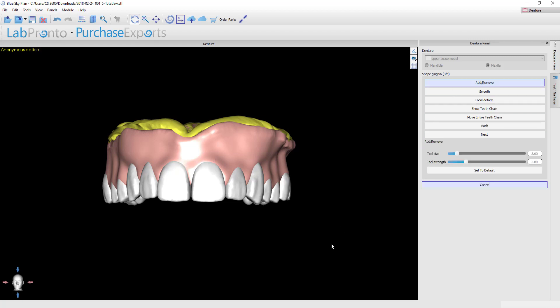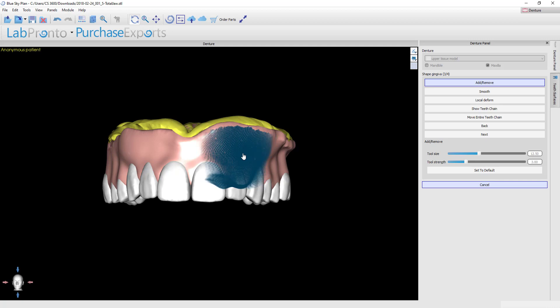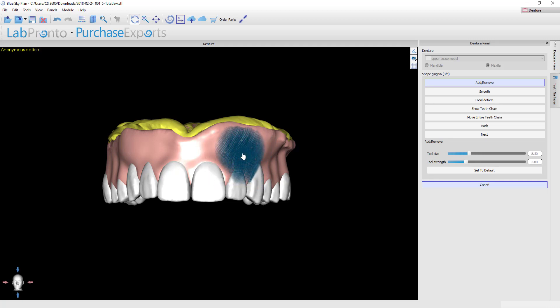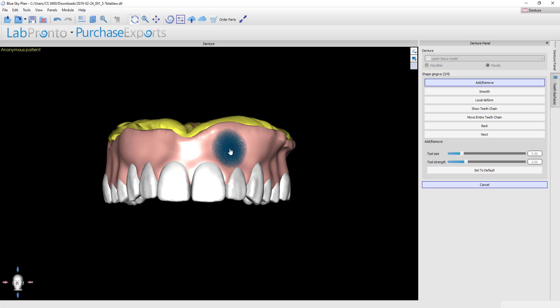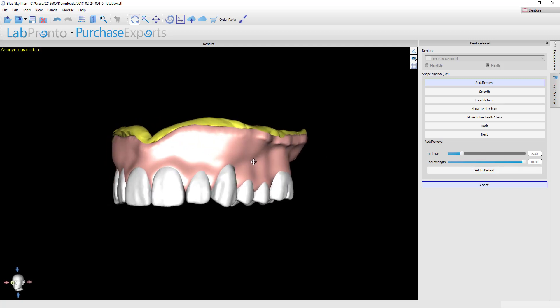The first is the add and remove tool. You can control the tool size by using this slider, or if you hold your shift key down and then use the scroll ball on your mouse, you can go up or down using the scroll ball to very quickly change the size of the spot size for your tool. The tool strength can also be altered by using the scroll ball, only this time you'll hold down the control button. Alternatively, you can just come over here and grab the slider. I usually like to use these tools at full strength, and then the spot size just depends on what I'm doing.